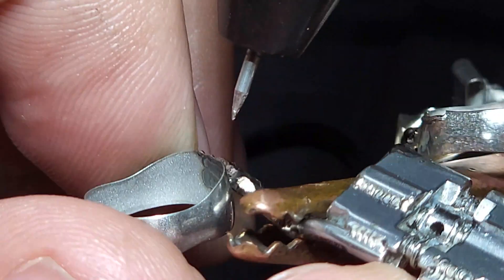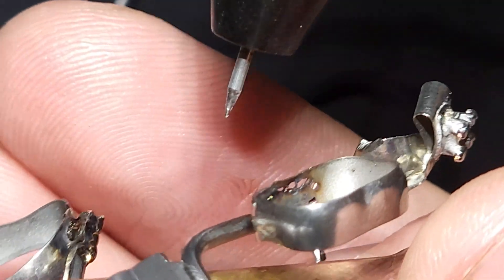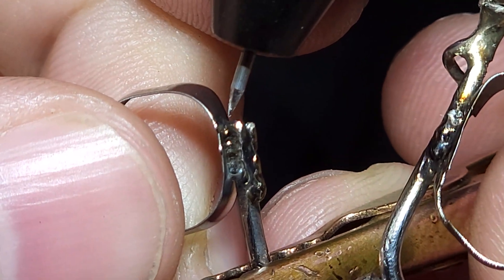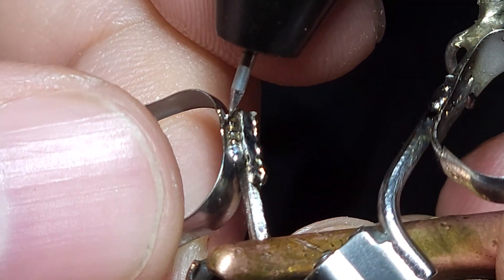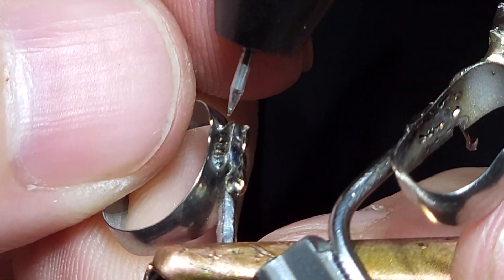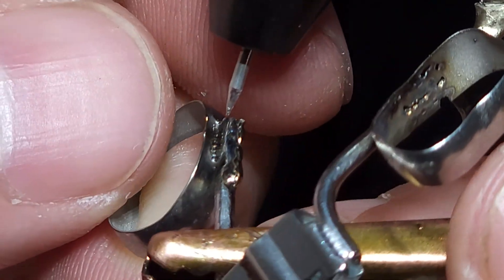We're going to get to a point where we need to go into this corner area, and that's where the dripping solder comment usually comes in — I don't want to trap food in there, which can cause some concern. At the very end, I'll come in at an angle. Especially with silver — gold is a little more forgiving; silver can crack, and that's not something you want to lose. You can see I have some evidence of melting on the edge of the molar band — we can fix that in post. It does clean up, and that's why having it centered is more important.